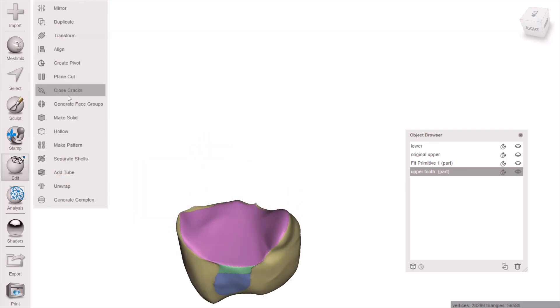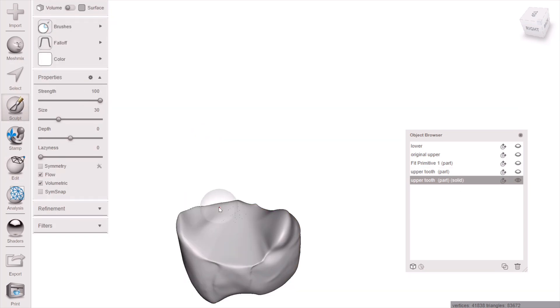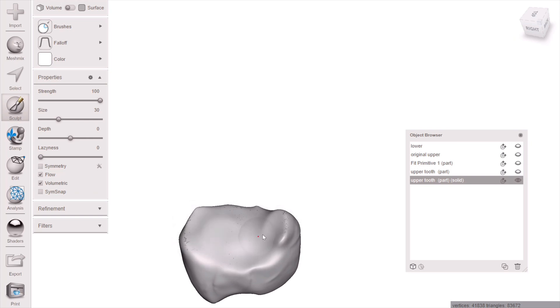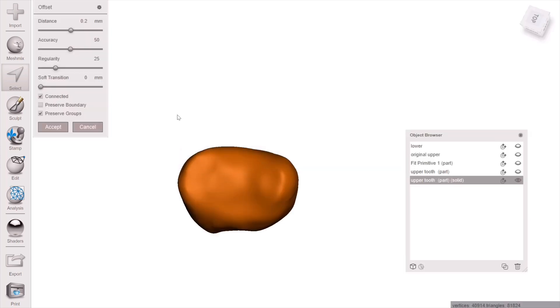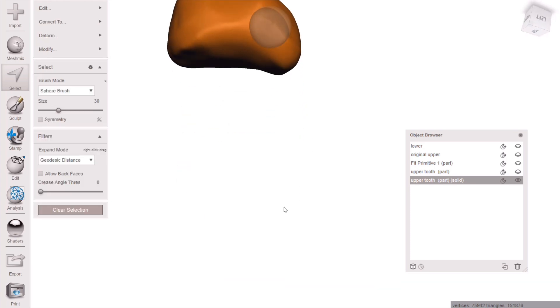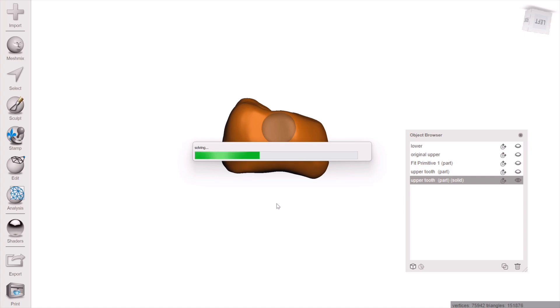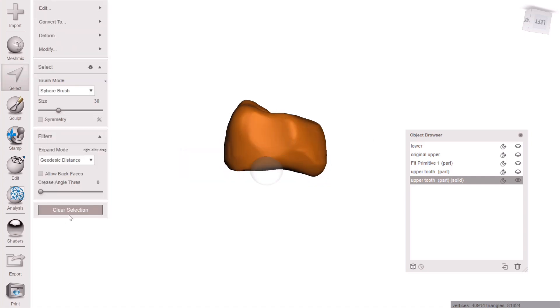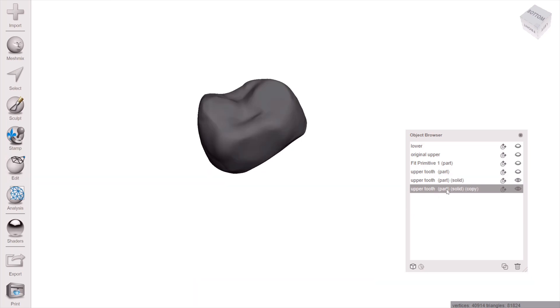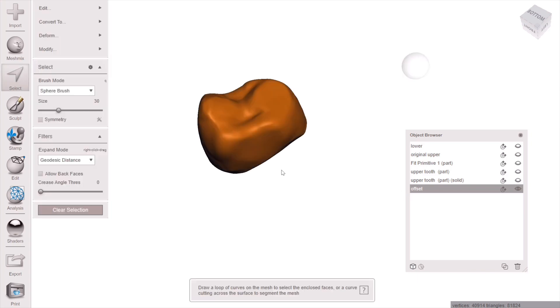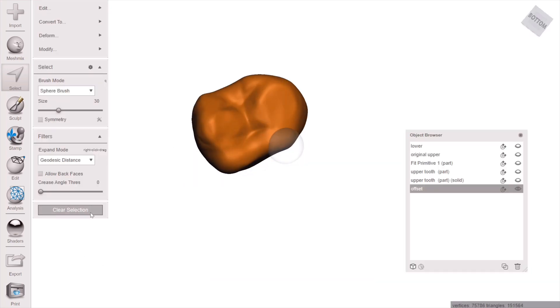Now we need to create our split file. Take your original tooth and first smooth the pontic area so it's offset from the tissue. Go to Edit > Make Solid, then go to Sculpt > Bubble Smooth and hold Ctrl down to melt it back a little more on the pontic area to create adequate space underneath that tooth. Then hit Ctrl+A, go to Offset, and create a 200-micron offset model — 200 microns bigger than your original tooth. Rename that 'offset' so you don't confuse it with the original tooth. This offset tooth is what we'll use to boolean subtract from the framework.